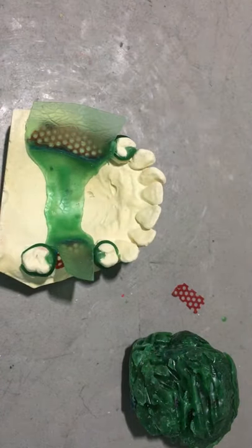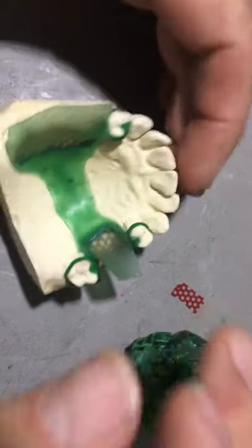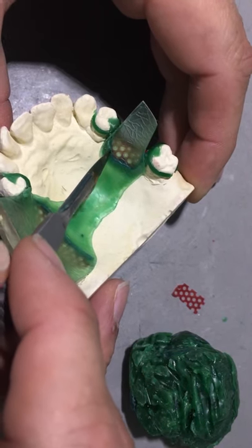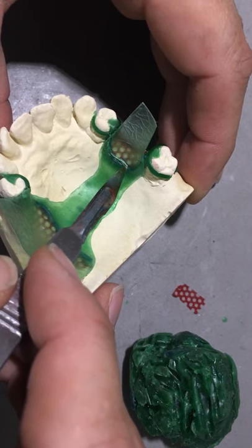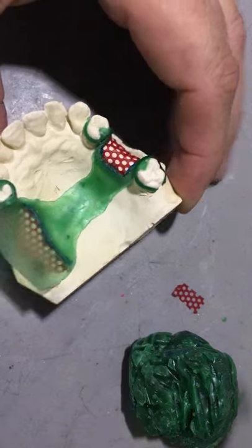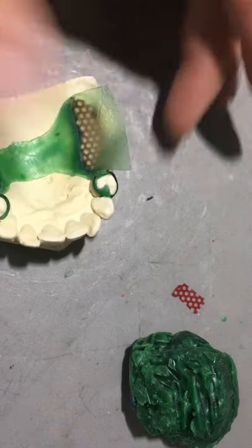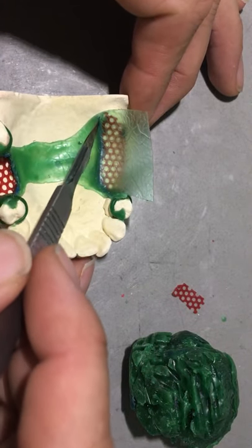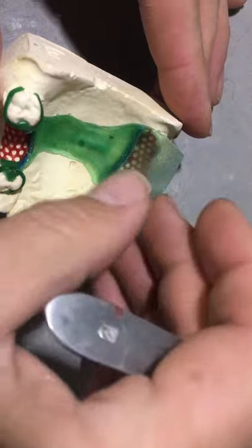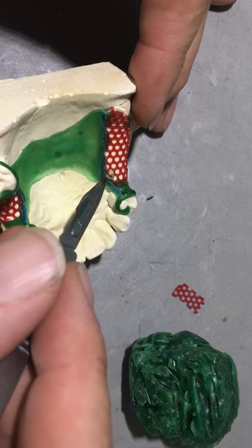Now I have the anterior and posterior bead lines cut to the appropriate length. This is the most challenging part - I'm going to heat up my surgical blade and cut the palatal wax and the 22-gauge wax in half with a hot instrument, sealing the two together, creating my external finishing line. If they're not sealed together then I run the risk of having investment creep down between the two layers. I'm going to go back and tidy this one up a bit.